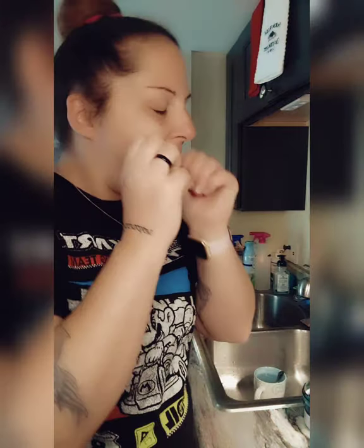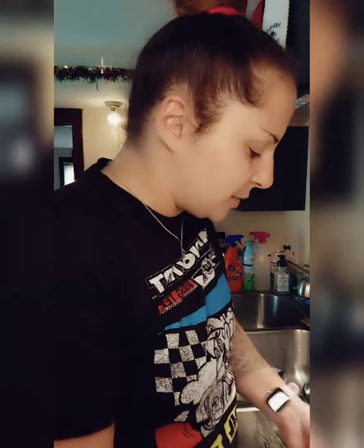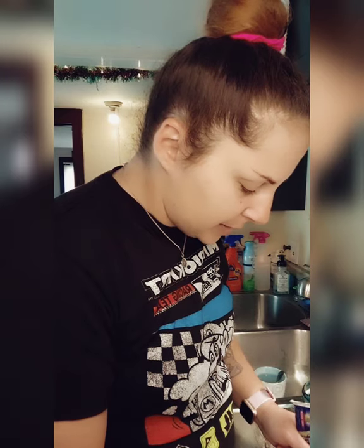Pop them in. I put my finger on my palette — where your thumb print goes — push it forward and put it in the suck zone. That's the top. I'm not a big fan of powder alone because it doesn't really hold that well, but ta-da. Now the bottom — same concept. Put some adhesive in here.